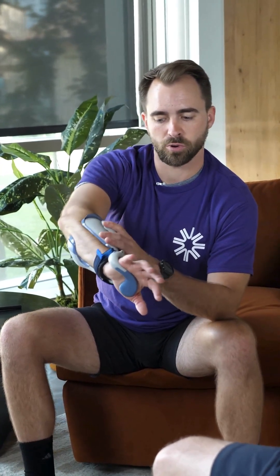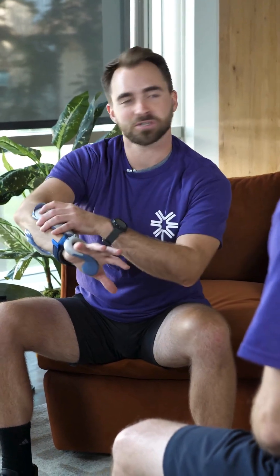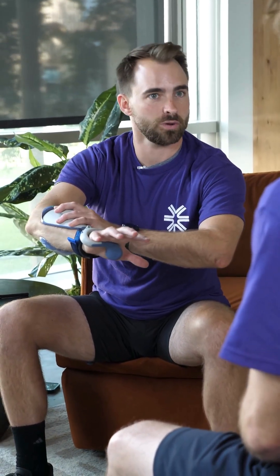This is an FES device — that stands for functional electrical stimulation. We send gentle electrical impulses into the nerves that stimulate the muscles to get movement. We do that because anyone who's had a brain or spinal cord injury or disease, that pathway has been disrupted from their brain that actually tells these muscles to turn on.